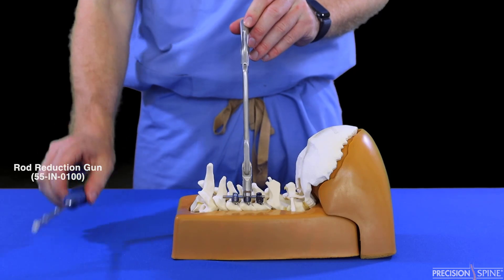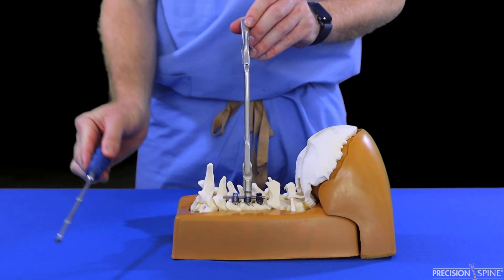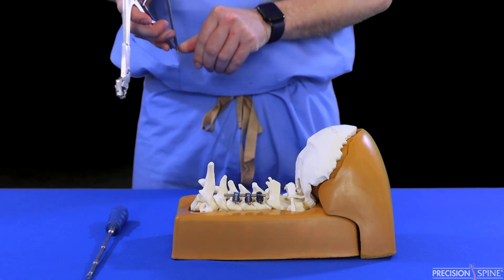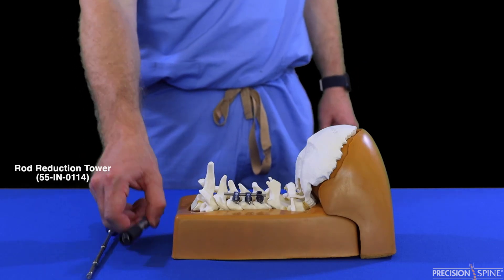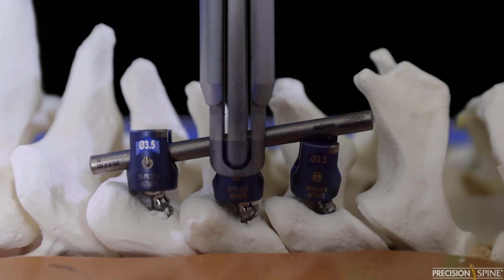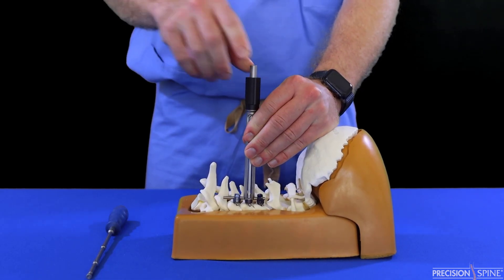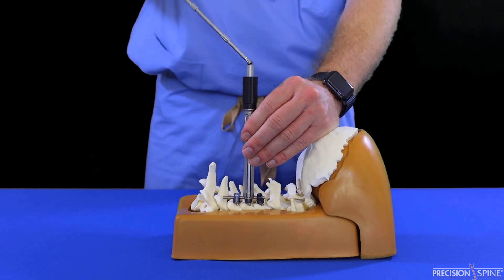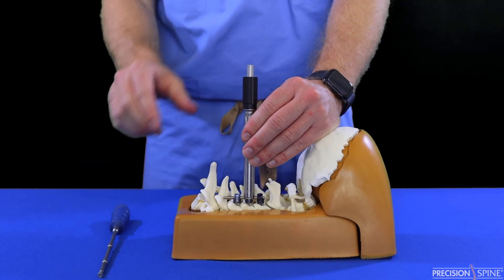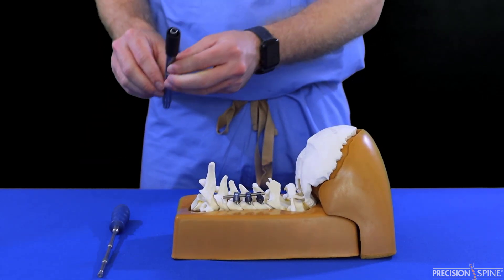Once the desired reduction is achieved, lock the handle in place. Once the set screw is delivered, remove the gun by releasing the lock and fully opening the lever. The rod tower reducer is used by placing the tower over the rod tulip construct. Reduction is achieved by twisting the black knob on the proximal end of the tower. Release the tower from the tulip by squeezing the tabs on both sides of the tower and pulling up.